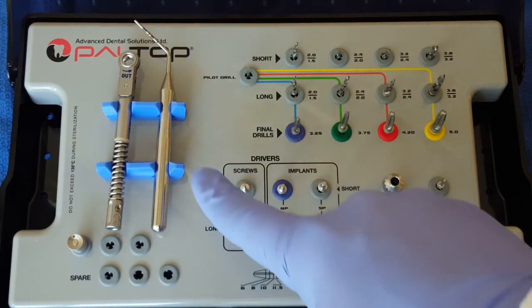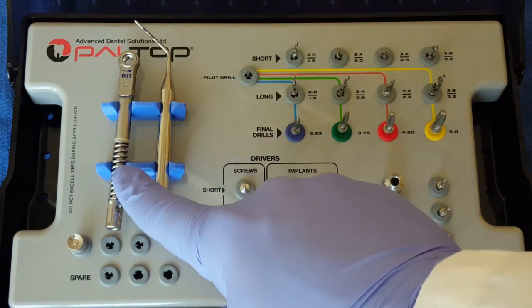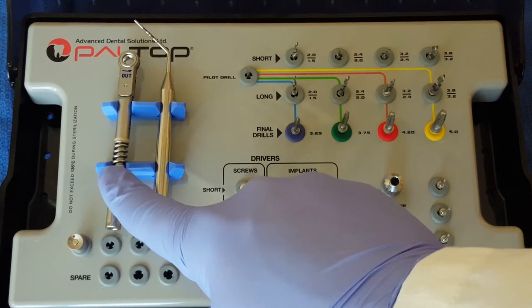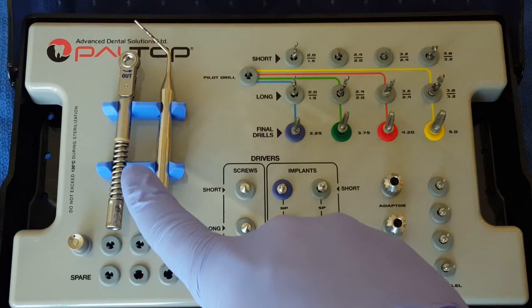There is a spare screwdriver, as well as a depth gauge to measure the implant osteotomy, and a torque driver to be utilized with the adapter and implant insertion keys.